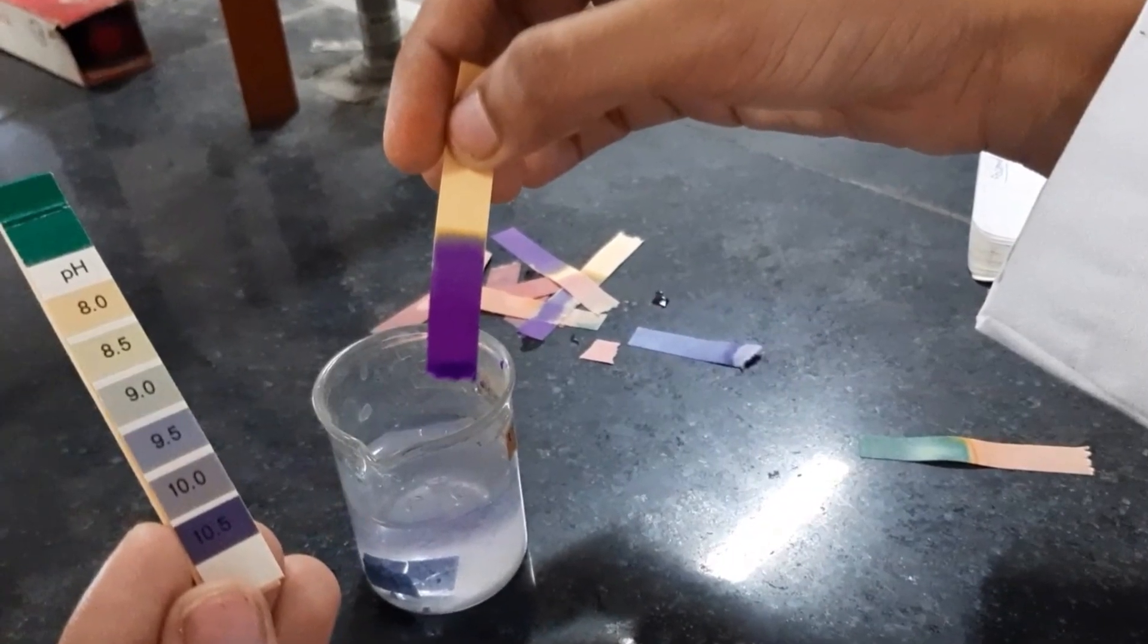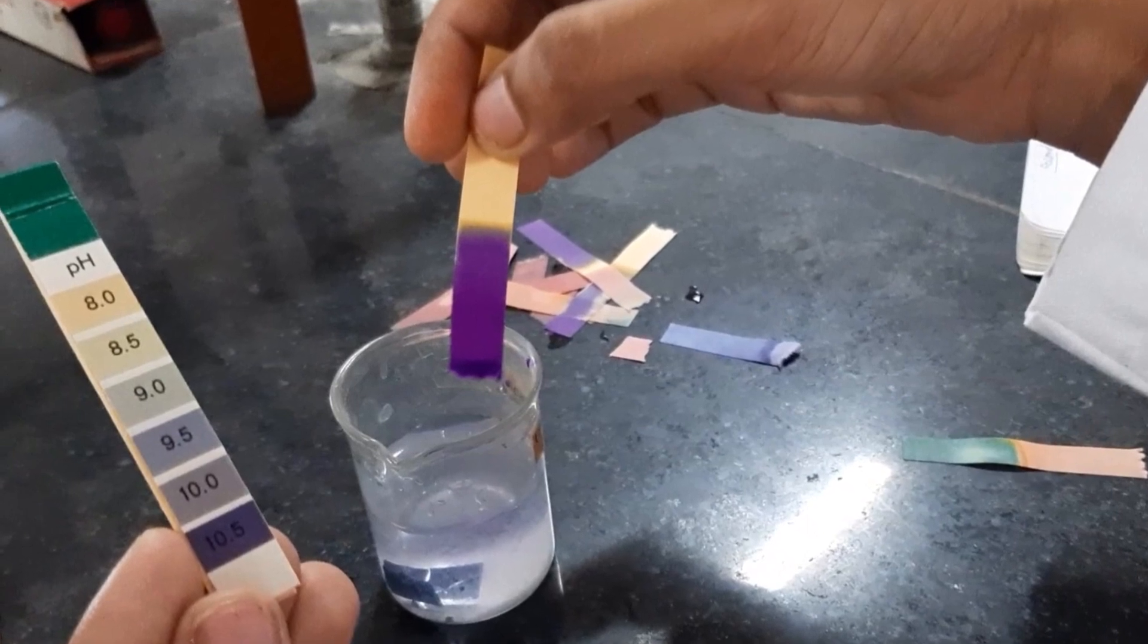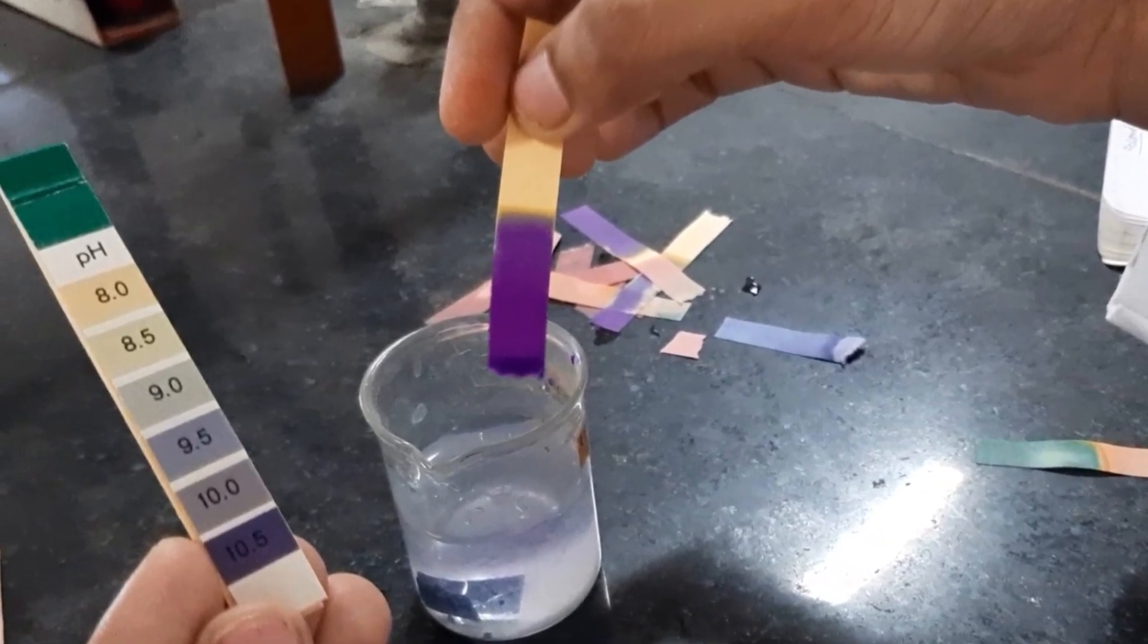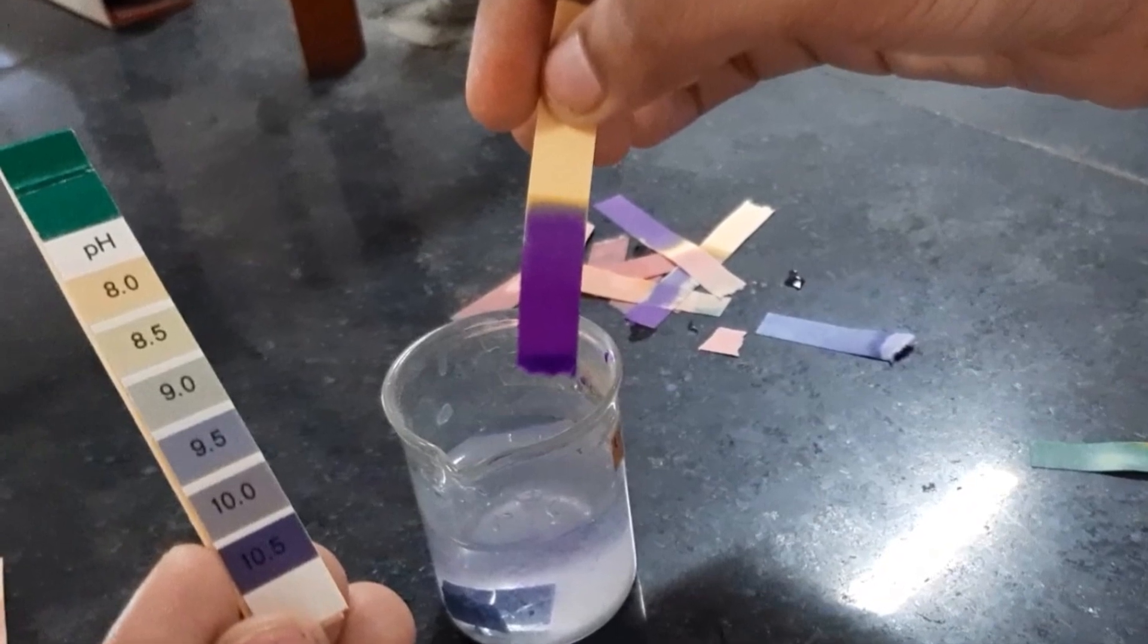Precautions are that all apparatus should be clean and dry, use a fresh urine sample, and litmus paper should be observed and noted carefully.